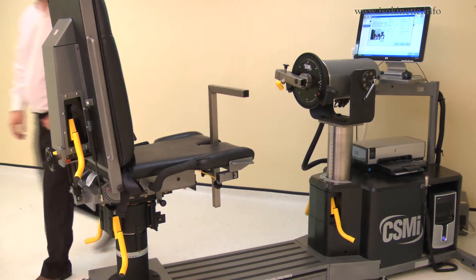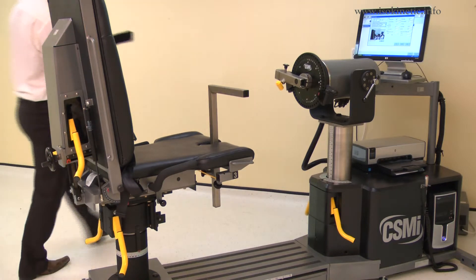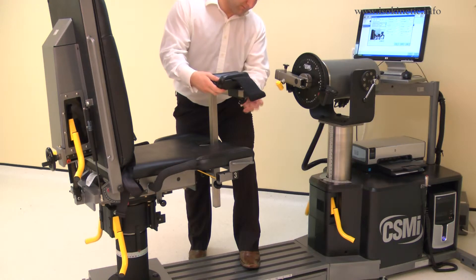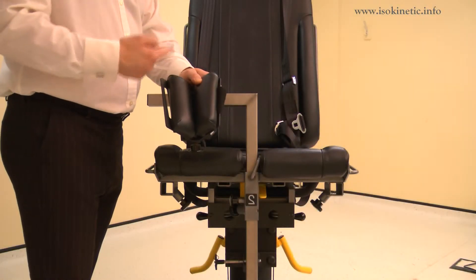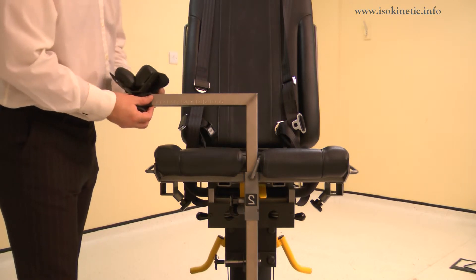Top tip: leave the stabilizer high enough to slide the leg underneath. Attach the forearm stabilizer v-pad to the stabilizer tube. Ensure the wide part of the pad is towards the chair, then slide onto the stabilizer tube. Secure with a screw.